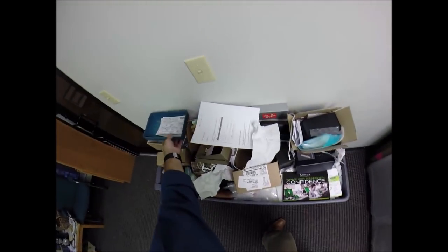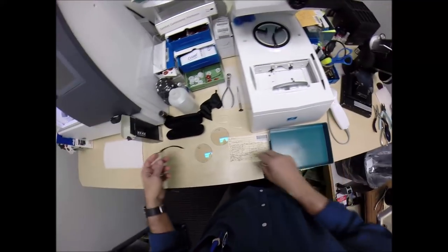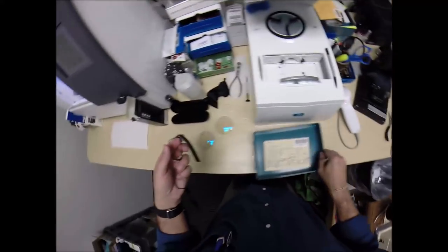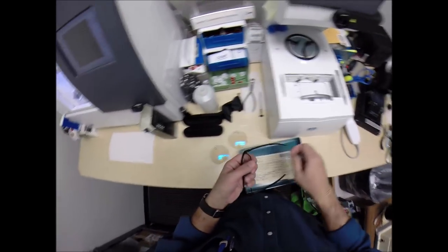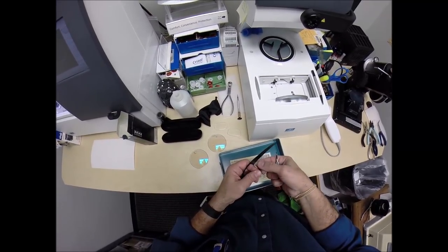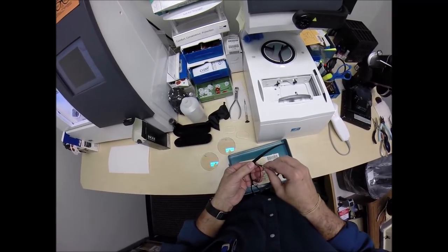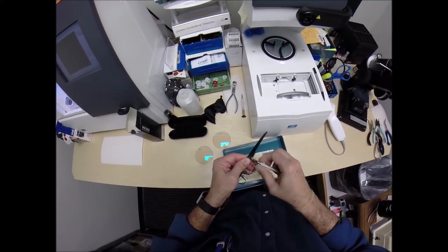So, let me do this. Where's the tray here? Let me dump this over. Get that out. We're going to use this tray so nothing gets lost. We're going to keep everything inside there. So stay with me on this journey. I'm going to show you how I bring that love and feeling back to glasses.